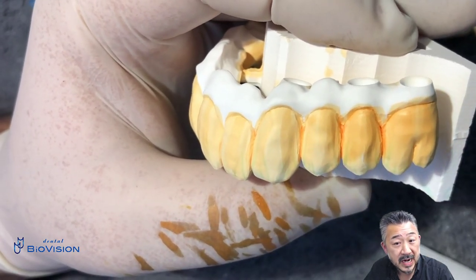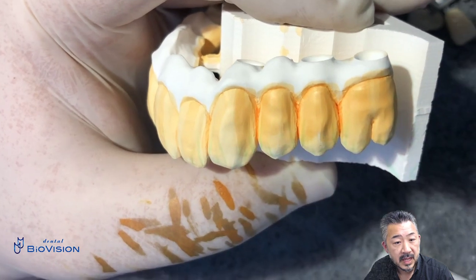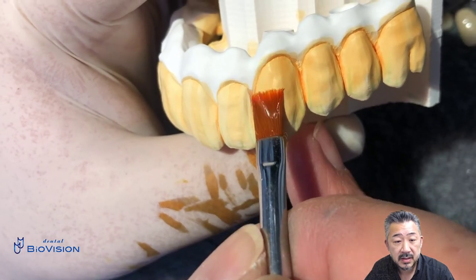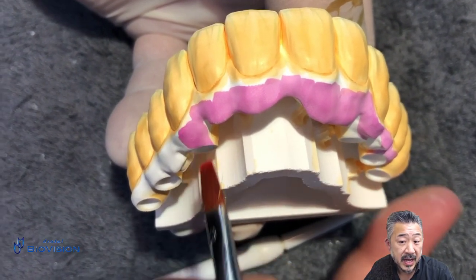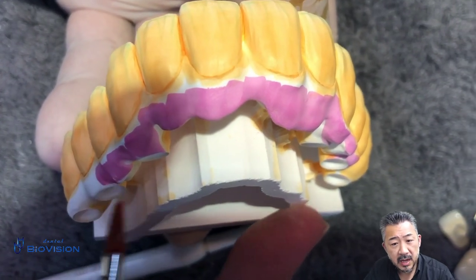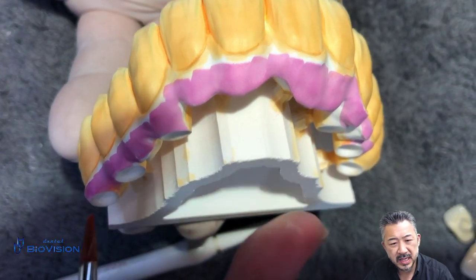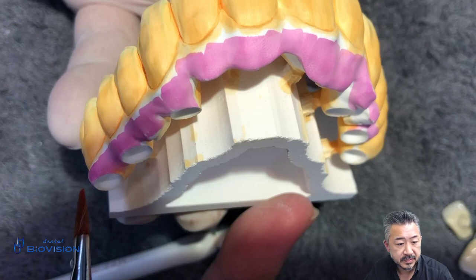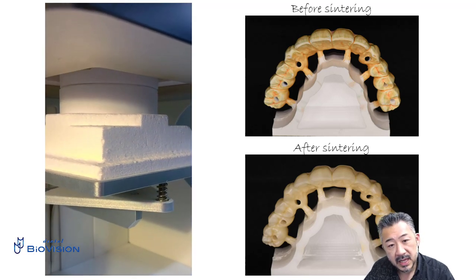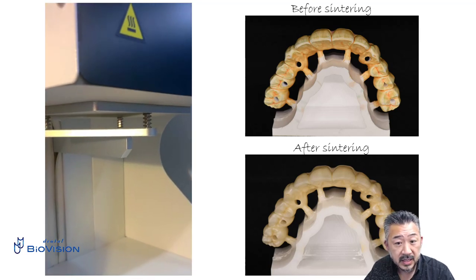Since it is a single color disc, the body color is divided into multiple layers for gradation. A blue or gray effect liquid is used near the incisal edge. Apply pink liquid to the gingiva design area but stop 3 to 4mm below the cervical line — this is because I want to make the color tone of the thin part of the gingiva just below the cervical line more natural with staining after firing. After applying the sintering liquid, put it in an oven at 100 degrees for about 15 minutes and dry it well, then put it in the sintering furnace.